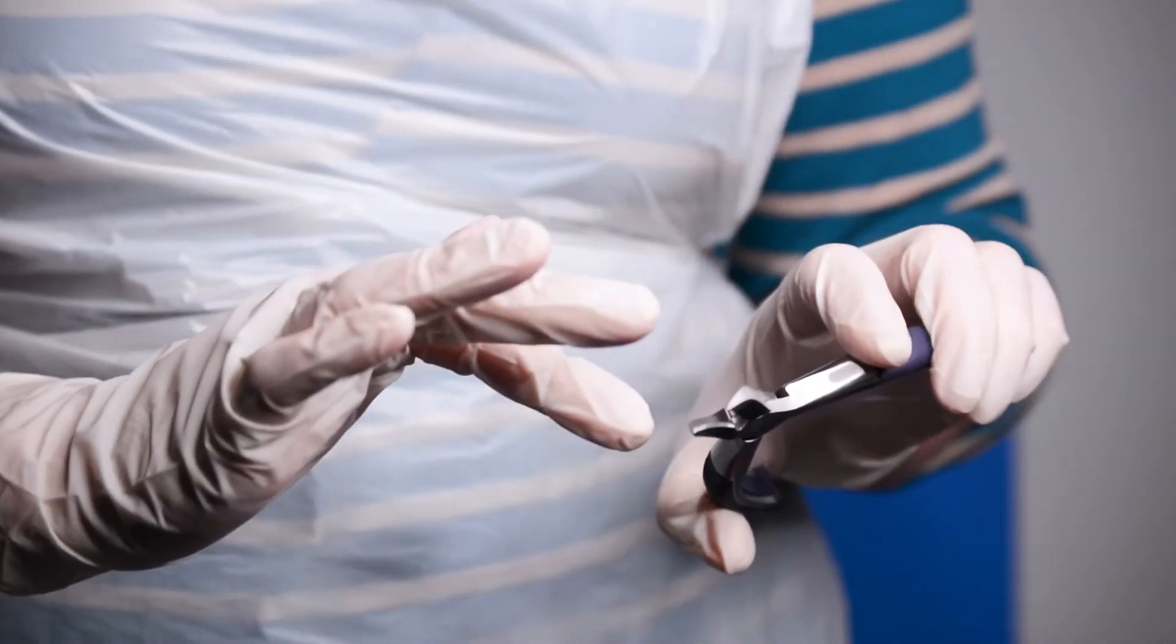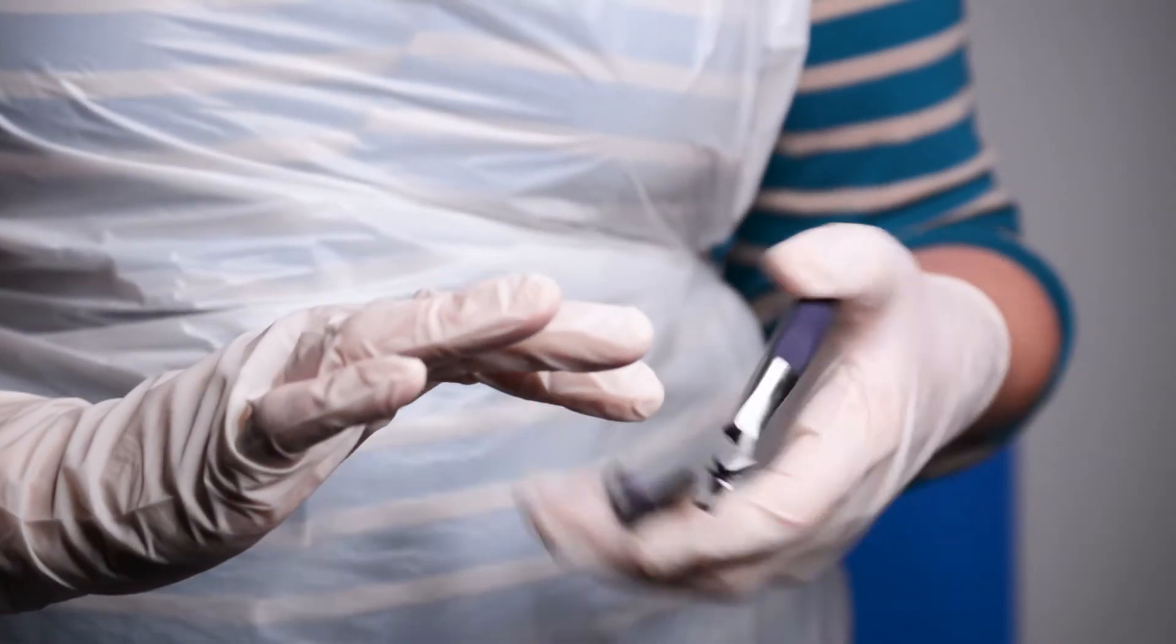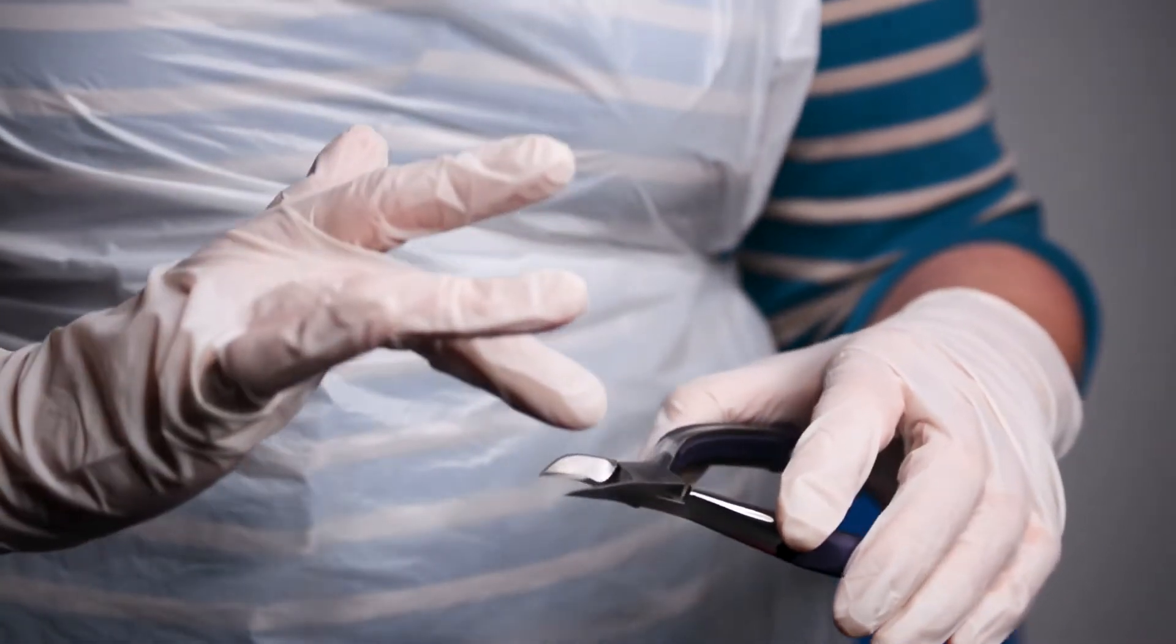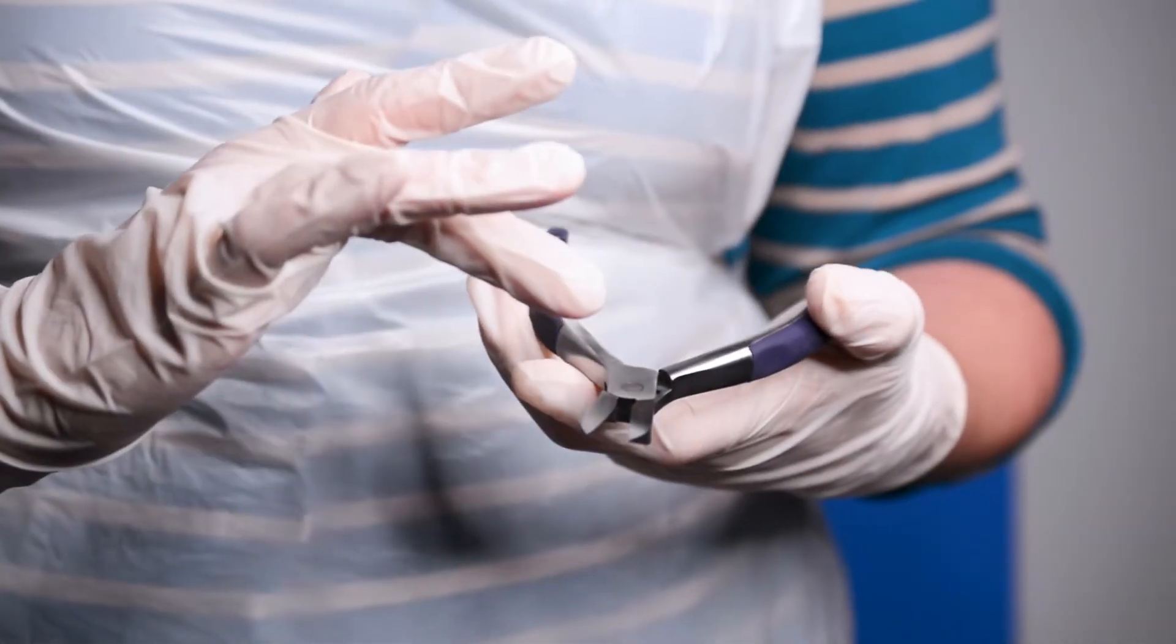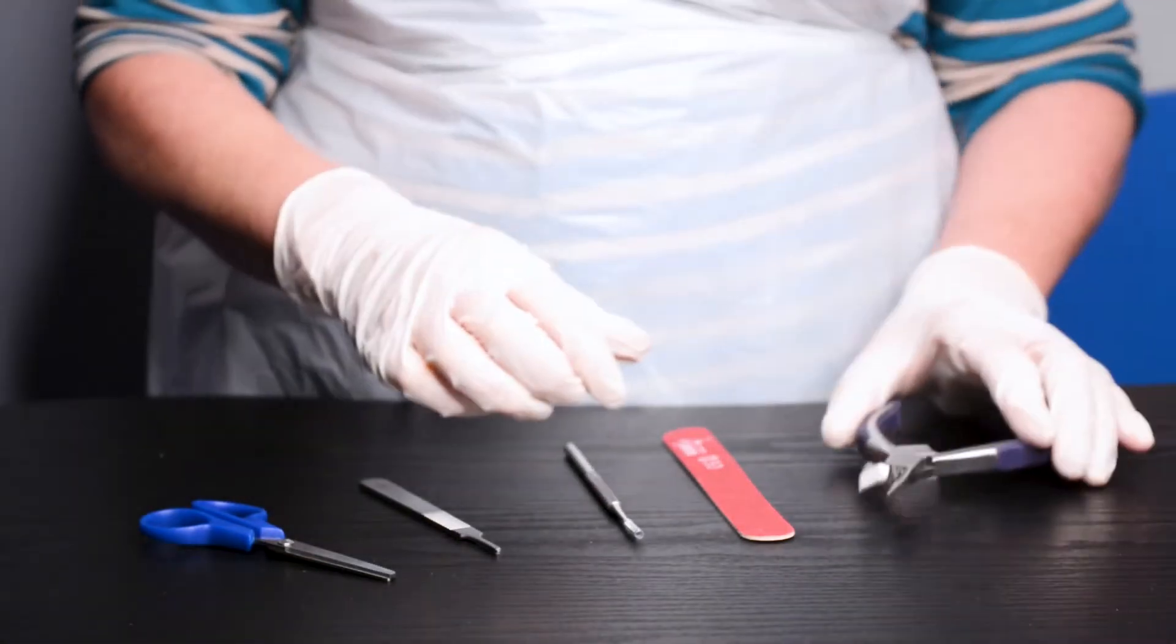The cutting edge has been honed for sharpness, which gives an easier, more reliable cut. The concealed spring has been designed to reduce failures commonly caused by misaligned external springs.